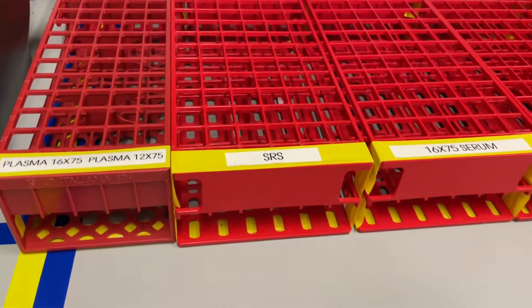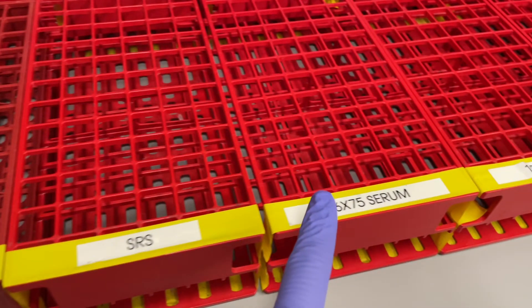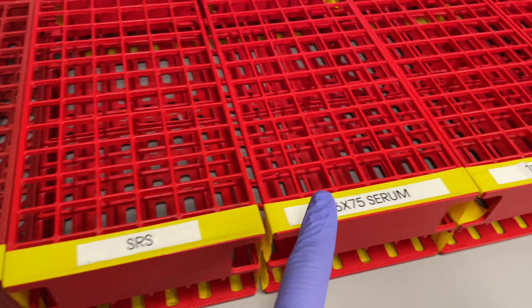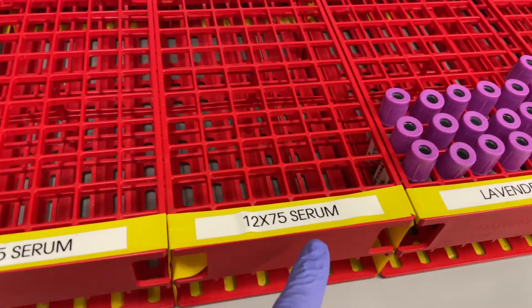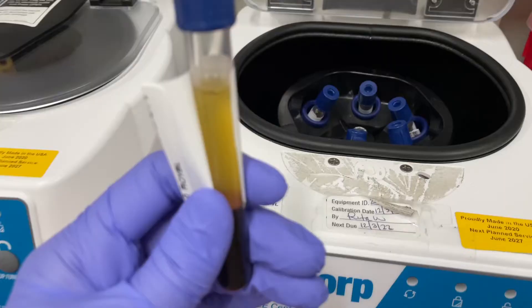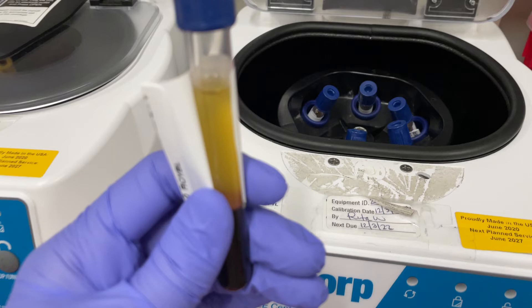After I've completed that instruction for that specific tube, I'm going to throw away my pipette, then cap it. I'll get a label — a label is going to print — and then I'm going to place it in the 16 by 75 rack because it's ready to be shipped off.